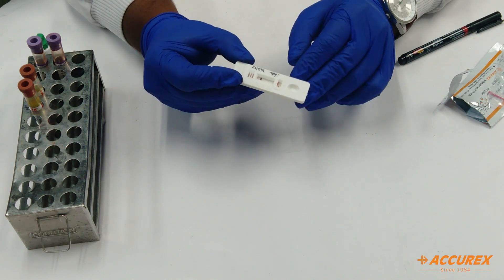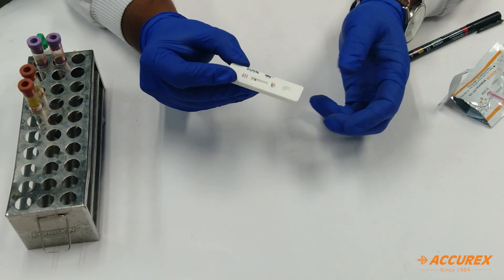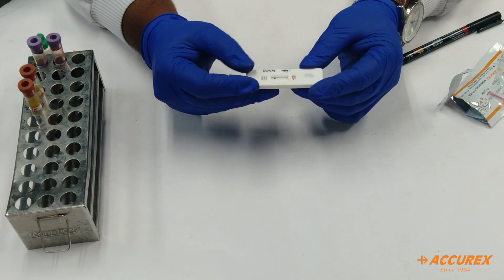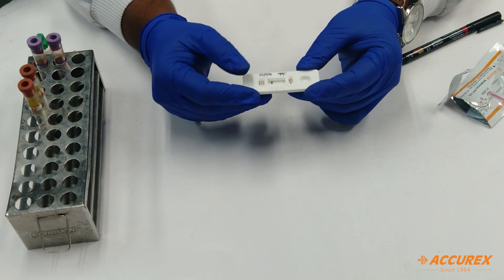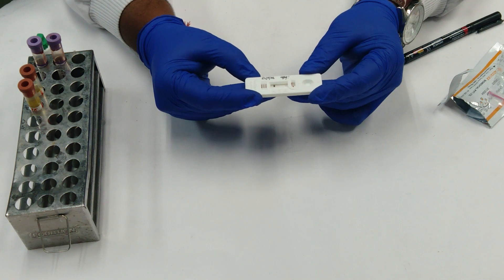If there is no line, it means the card is faulty. You need to repeat the test with a fresh one. So in this way, you can give the patient results in 20 minutes. Thank you.